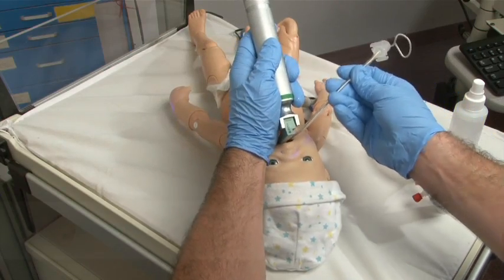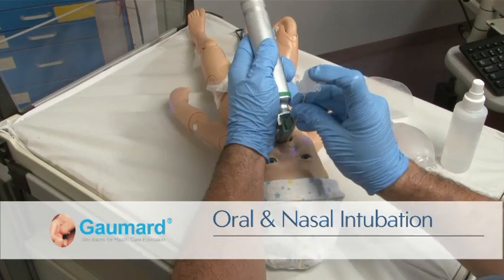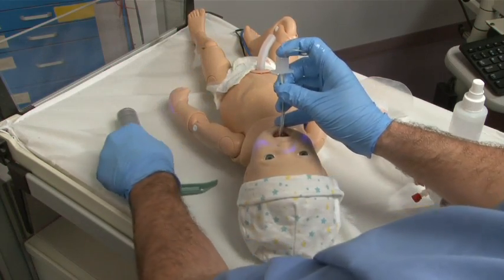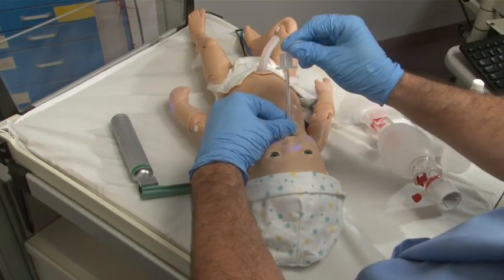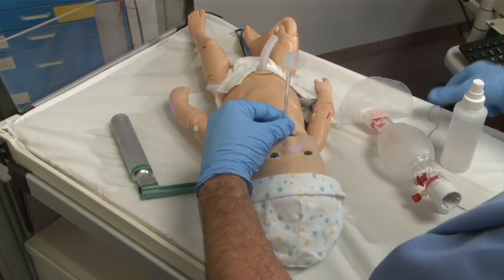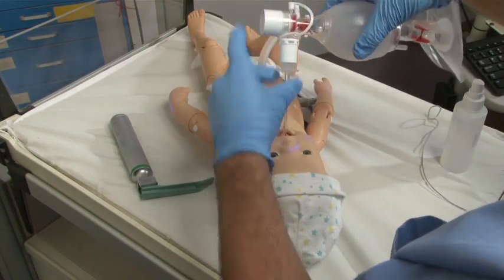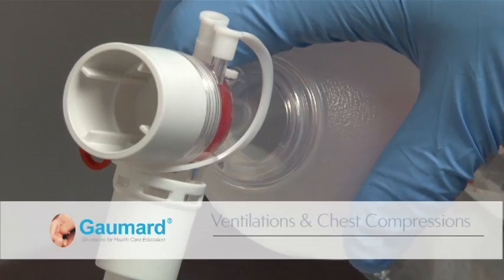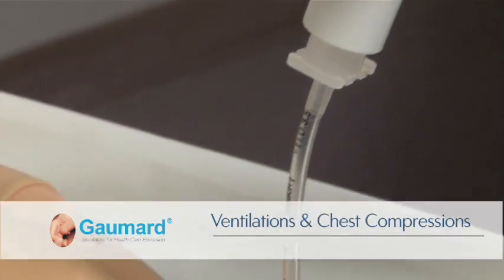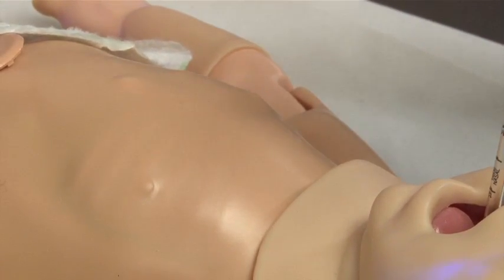Newborn's airway can be intubated both nasally and orally. Additionally, the newborn can be ventilated with a BVM or mechanical ventilator. Ventilation and manual chest compressions are measured and logged by the software, showing the instructor real-time feedback on how the students are performing the exercises.